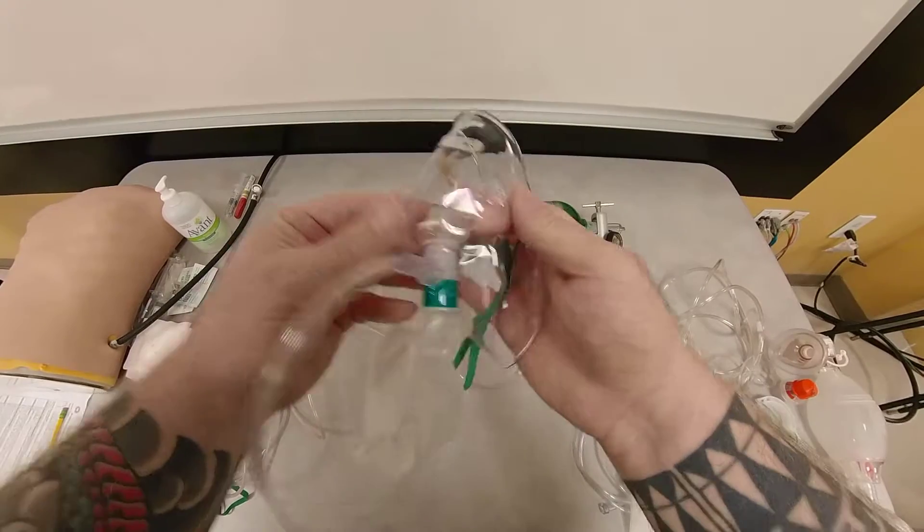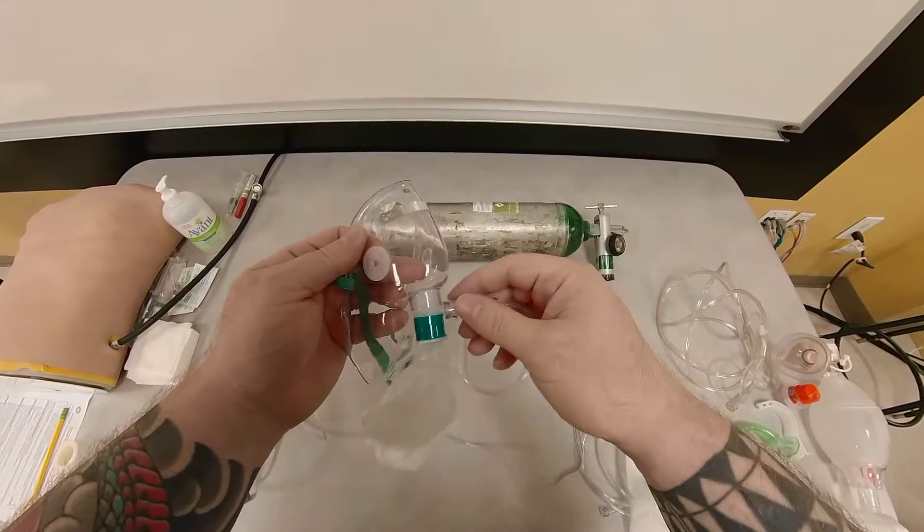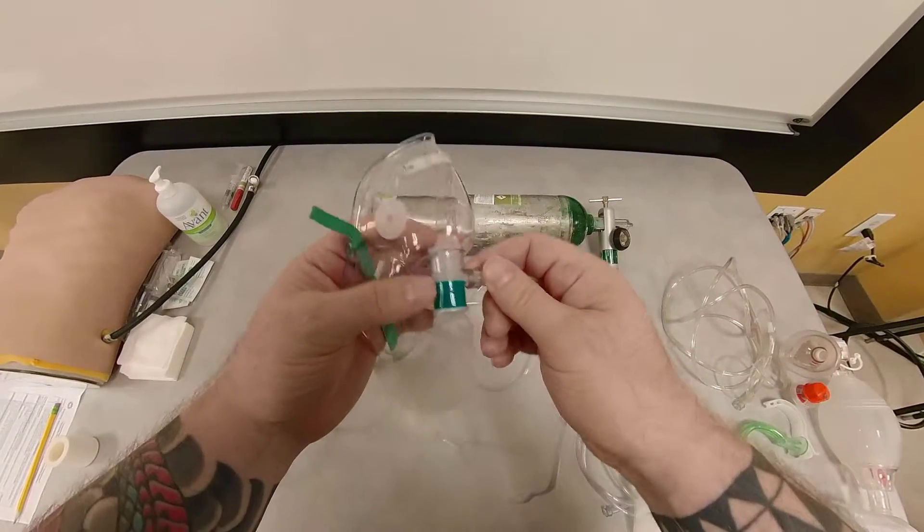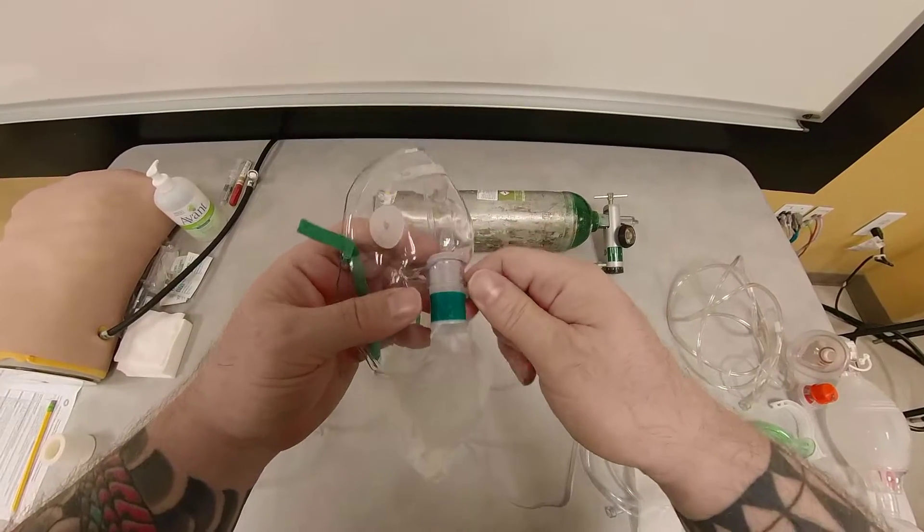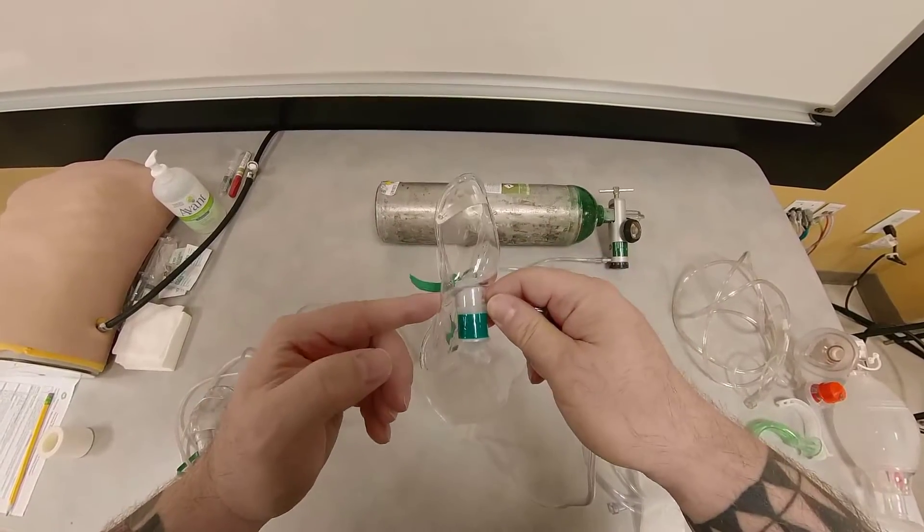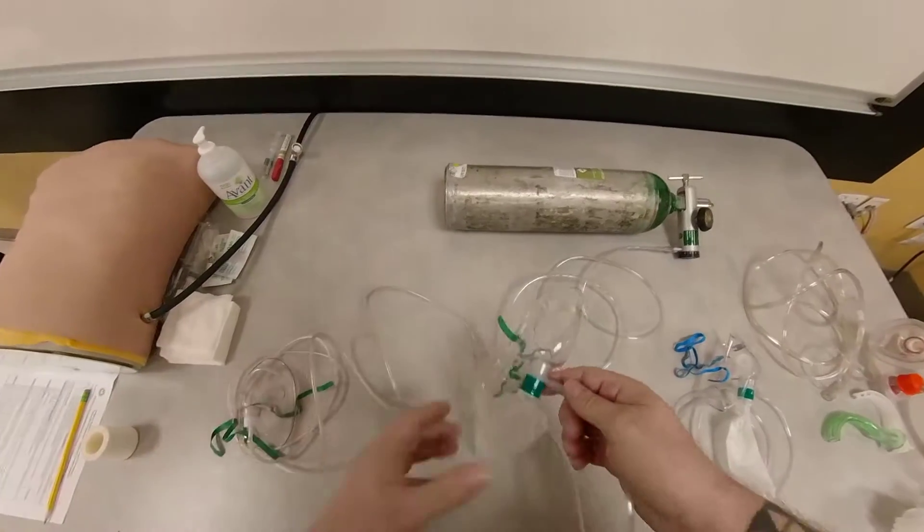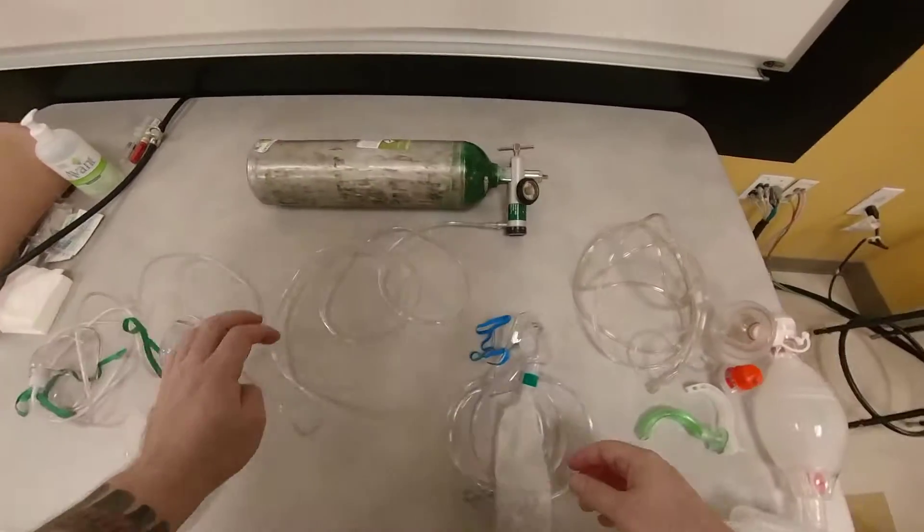But the issue with this is that it's not delivering full FiO2 as it can be. So FiO2 with this device, we said it's 70%. Simple face mask was 50%. So now let's move over to a true non-rebreather mask.